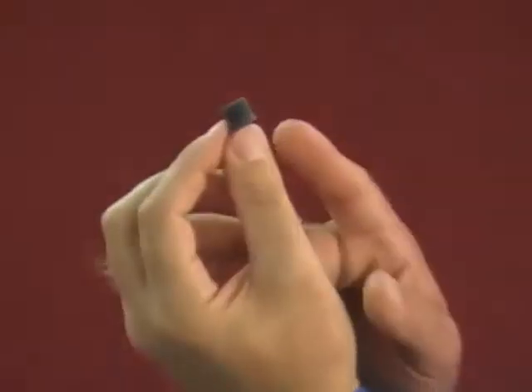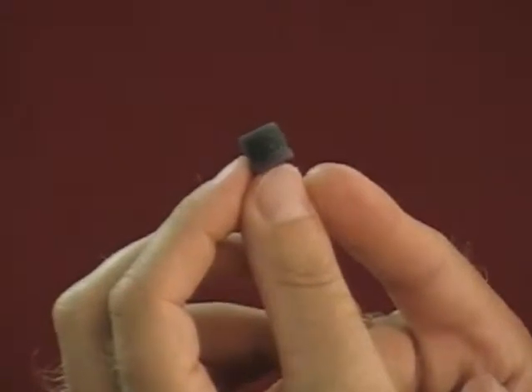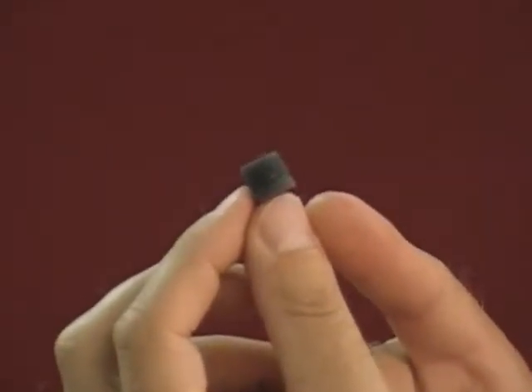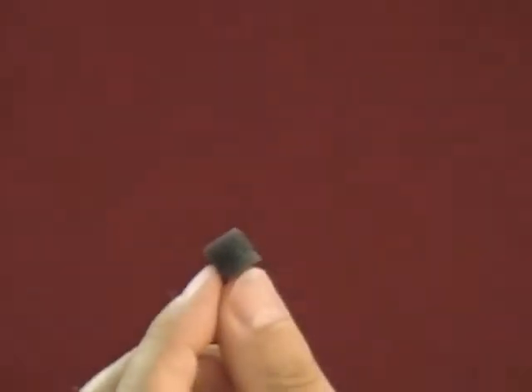This is the newest addition to hearing protection — the Comply A-100 foam tip. This is a dual core tip that gives you the ability to hear ambient sound and radio transmission at the same time. This earpiece is very comfortable, and the best part is one size fits all. Very easy to install.